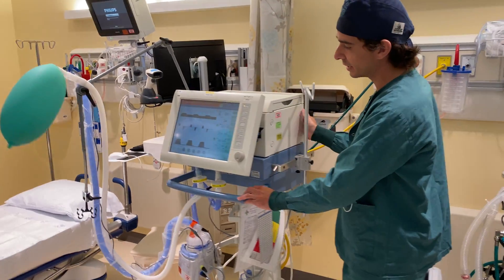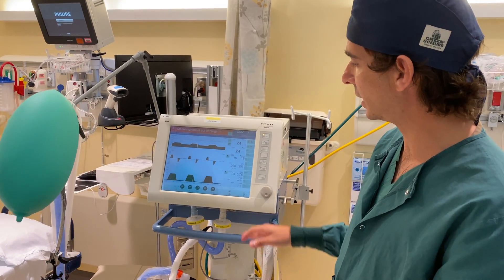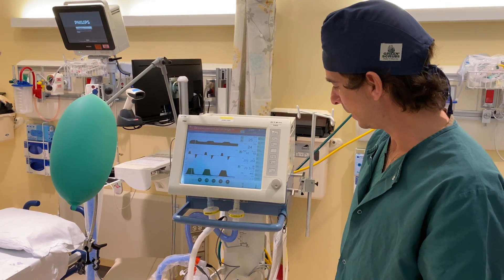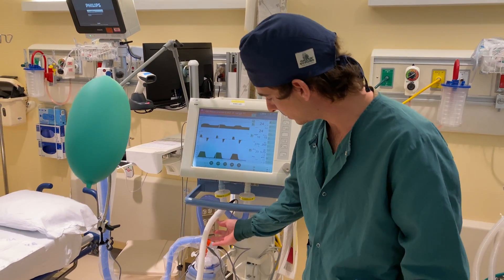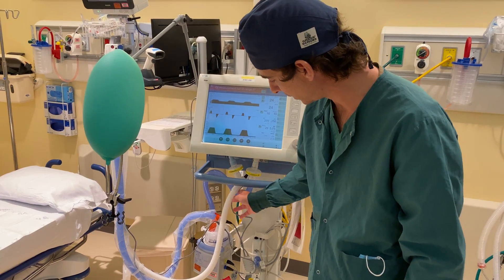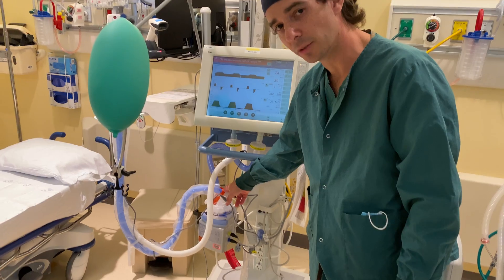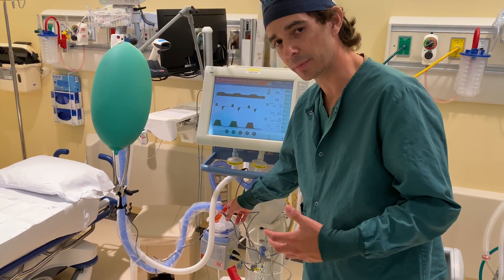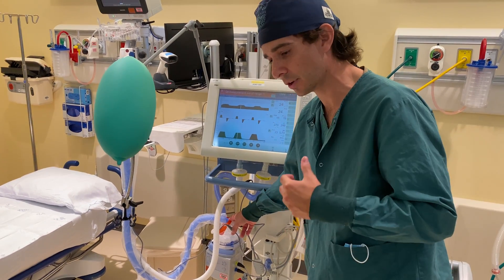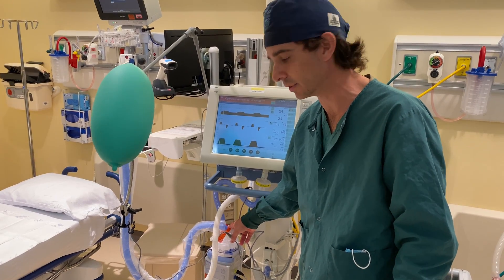Also to note on this ventilator, most traditional ICU ventilators have a large screen that displays a lot of information, as well as menus that can be navigated to customize it to the patient. These traditionally are dual limbs — an inspiratory and expiratory limb coming out of the circuit. You'll notice both have viral filters. The inspiratory limb first goes through an active heated humidification system to heat the air, provide moisture so that the patient's airways don't dry out, and so that secretions don't get dried in the endotracheal tube, which can cause it to obstruct — which can be a serious, even life-threatening event.